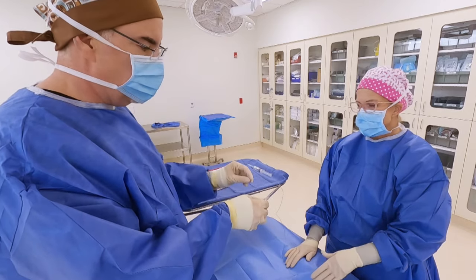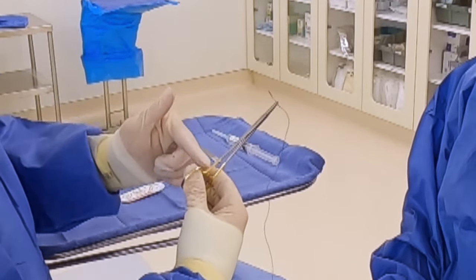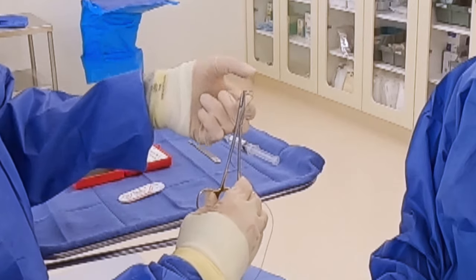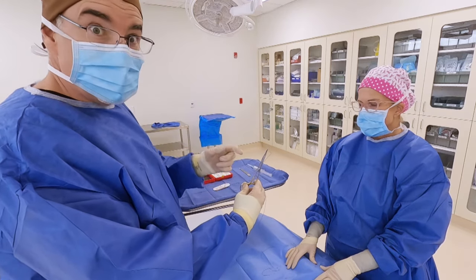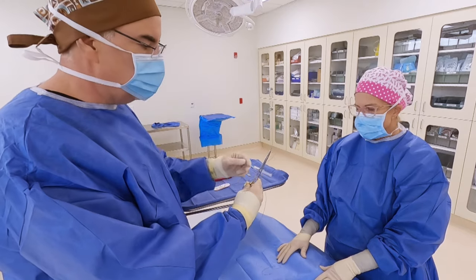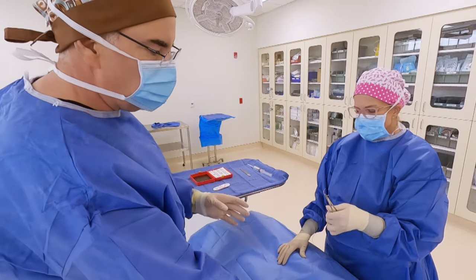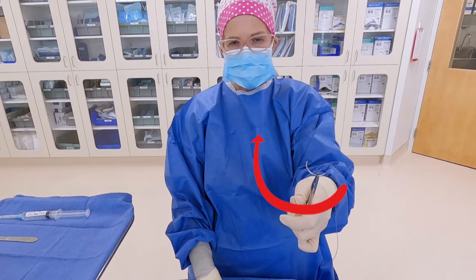If passing to her left hand, grab the needle on the longer side, release that one lock but don't release tension on the needle — keep tension on so it's still holding the needle in place. With that tension on, twist the needle over 180 degrees. Still holding tension, never releasing the needle, ratchet to that first lock again — just one click — and you're ready to hand it to her left hand. Snap it into her hand and drape the suture over the back of her hand. With the needle flipped over for her left hand, it is still pointed at her heart, not at her shoulder.